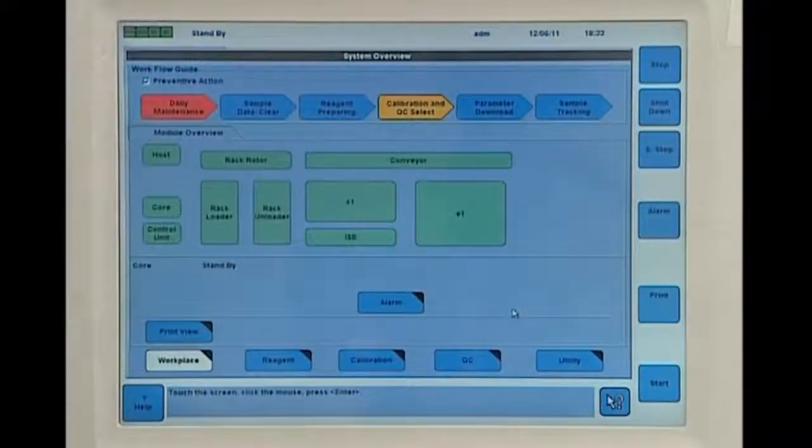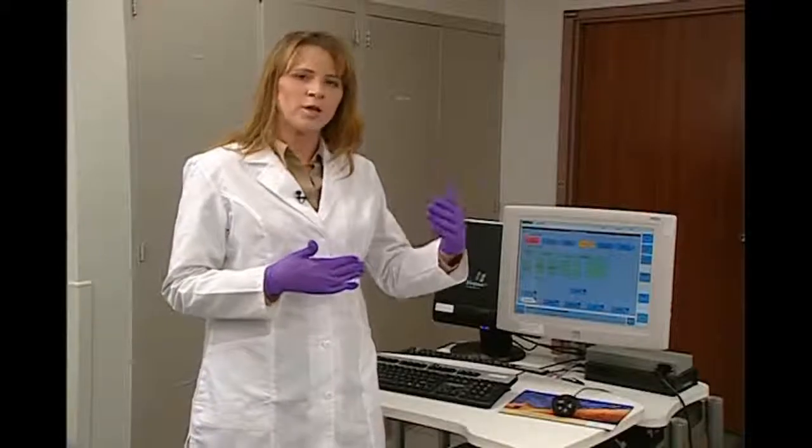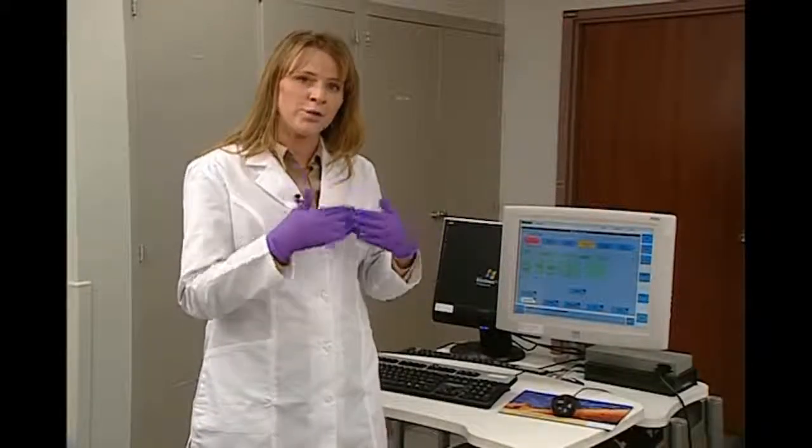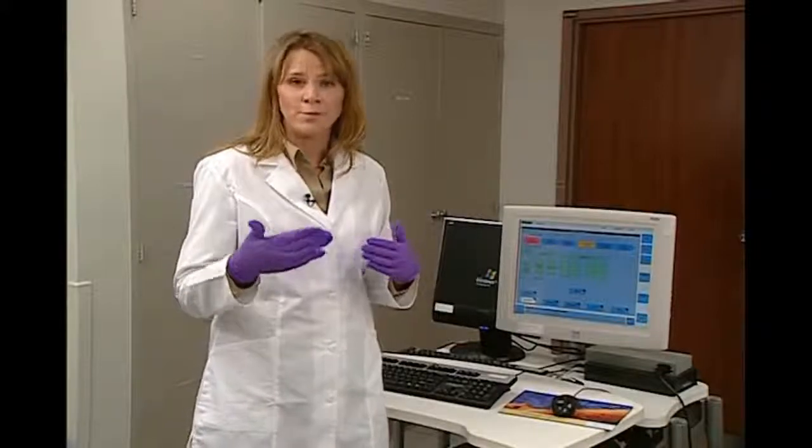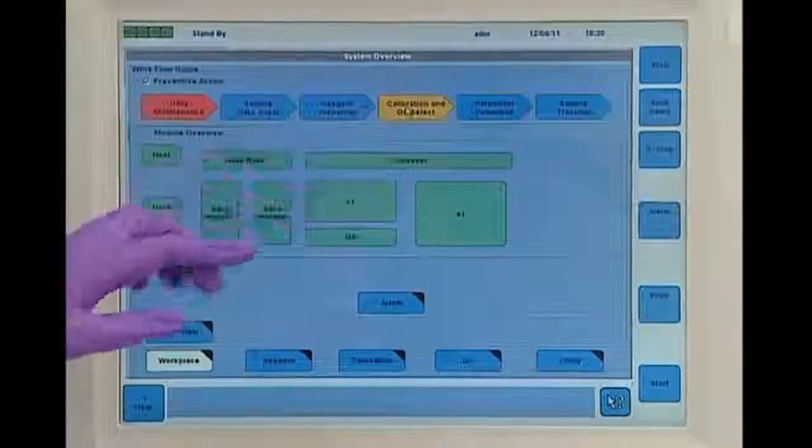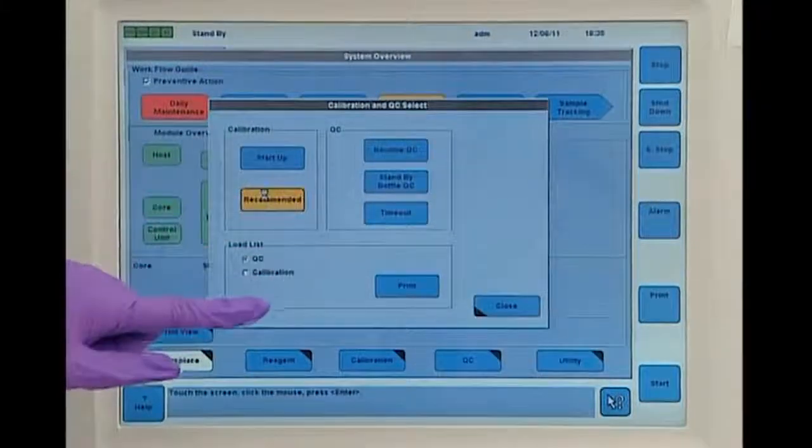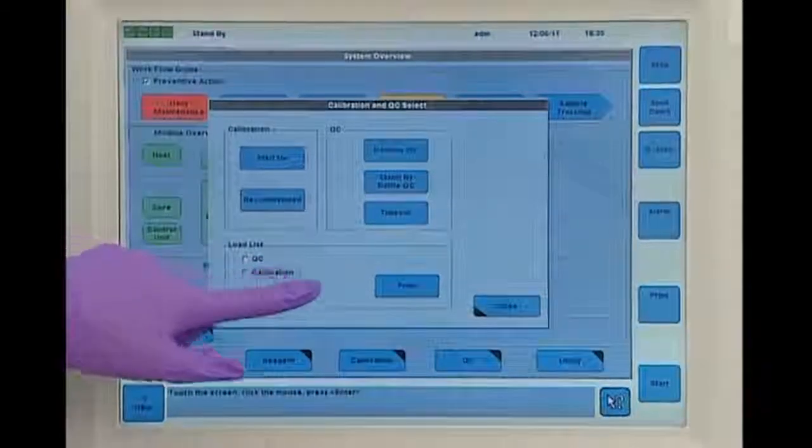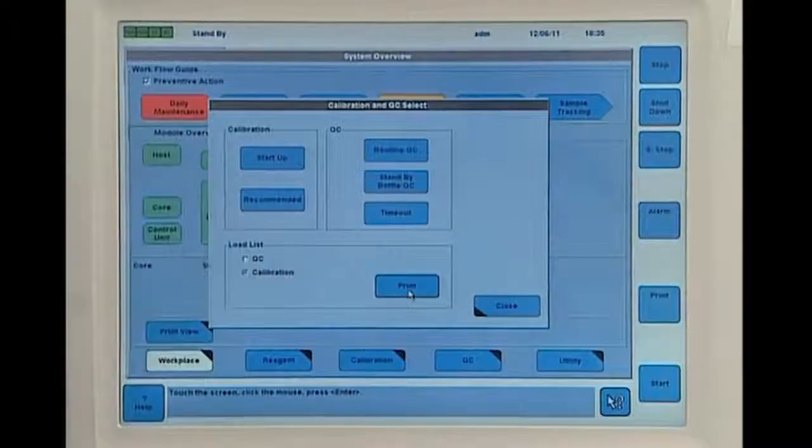The preventive action not only gives us a purple alarm, but it also does what we call a calibration look-ahead. So we're going to pull all the calibrations forward and do them now, so that we don't have to be interrupted throughout the day with calibration requests. It's as easy as pressing the calibration QC select button, hitting the recommend button, and then printing the load list.